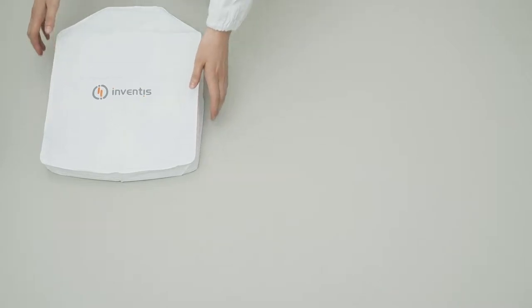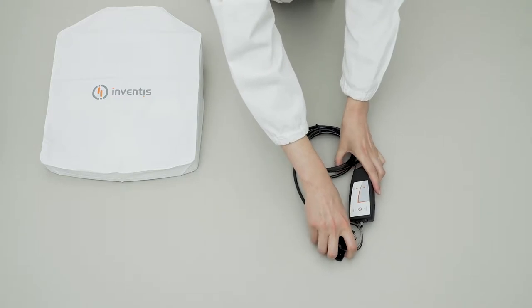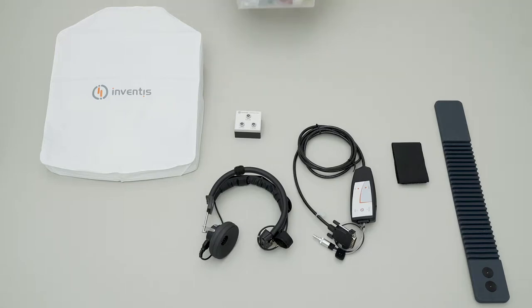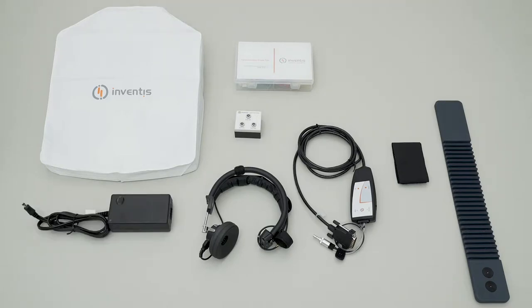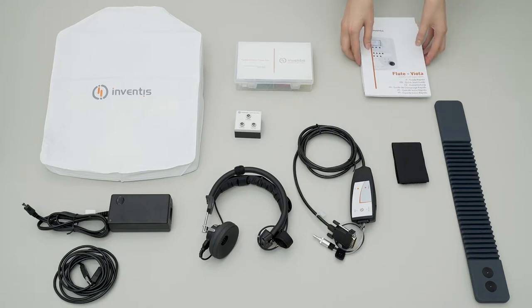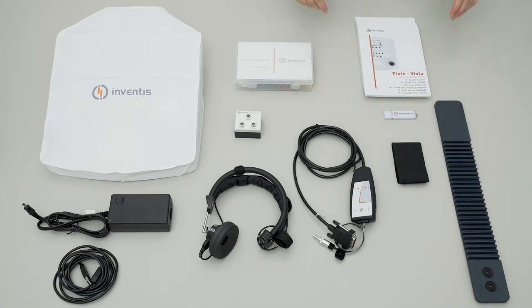The Flute package includes the control unit with its probe, the contralateral headset, the calibration cavity, an assorted ear tips box, a plastic cover sheet, a medical grade power supply, a USB connection cable, the user manual in English, a multilingual quick start guide, and the Inventis software suite available on the provided USB.